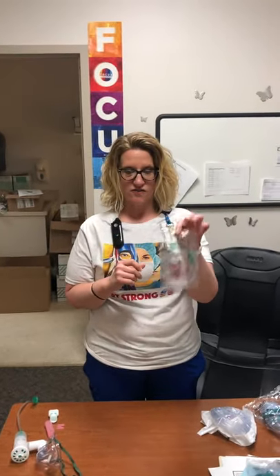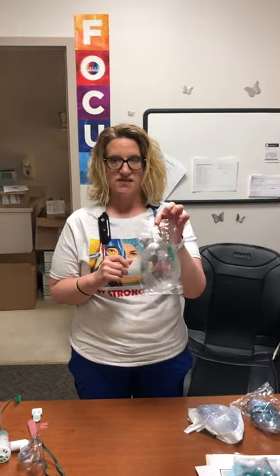We're going to talk about oxygen devices and the ones that you're going to use in the ER. The first one is nasal cannula.